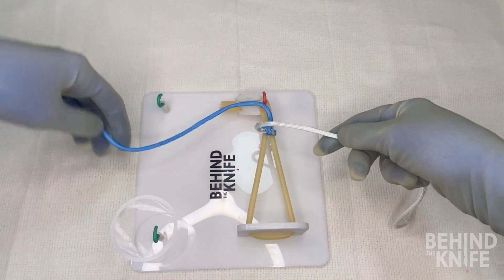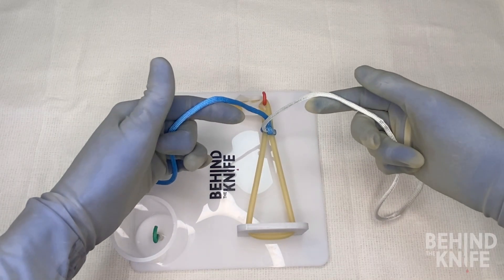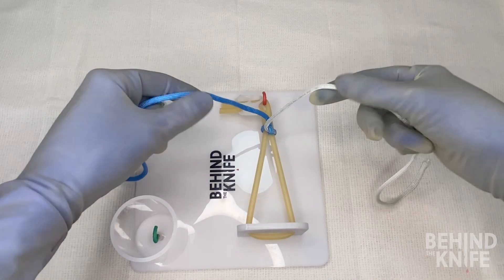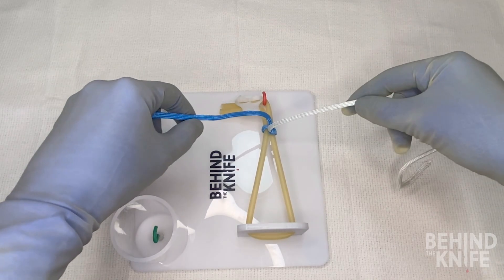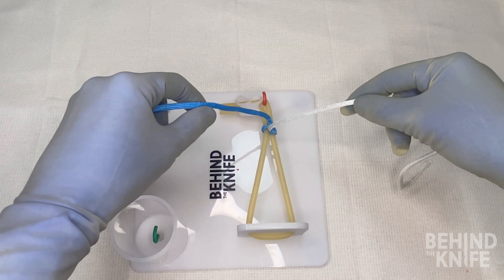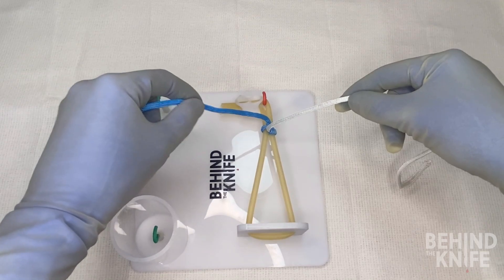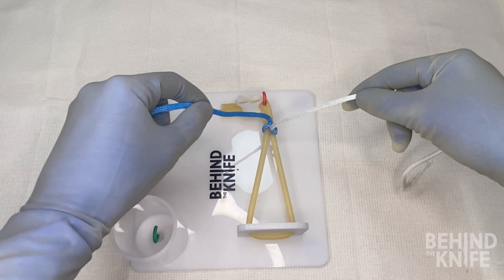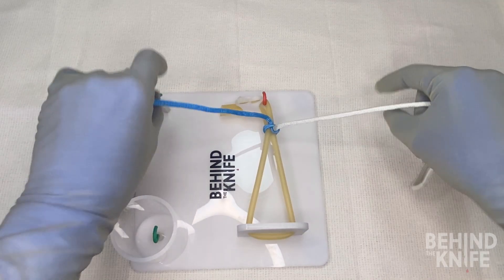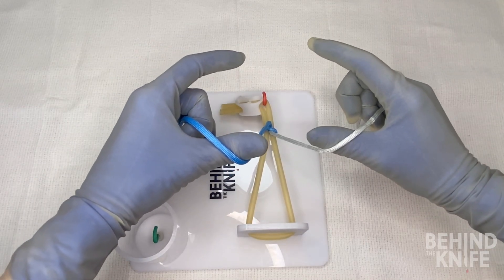This is just one half of our knot. In order to continue throwing square knots, we'll have to switch to making the C's that we talked about before. To do this, you'll pick up the same side of the string in the same hand as before — so for me the blue side is in my left hand and the white side is in my right hand. But instead of making L's, this time we'll make C's with the string draped around our thumb.